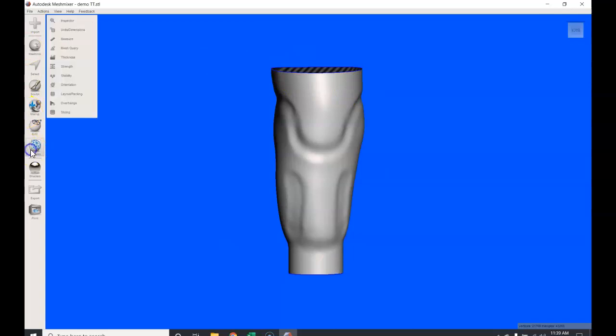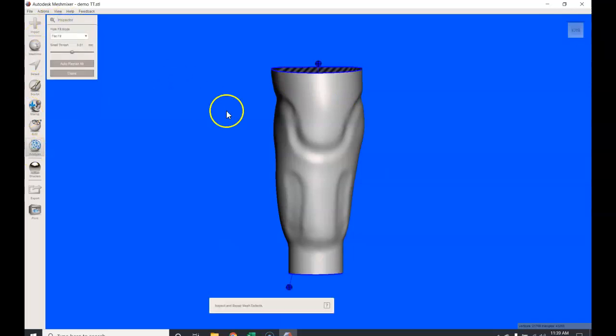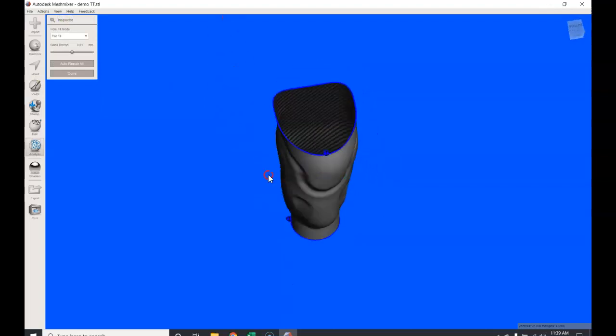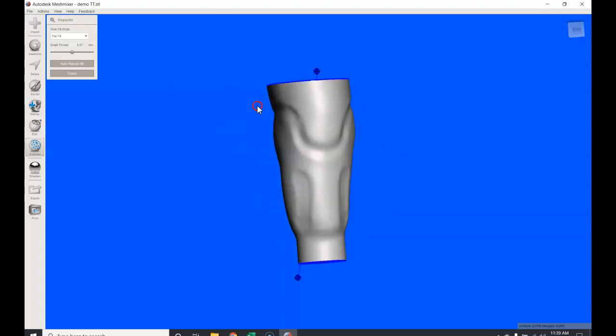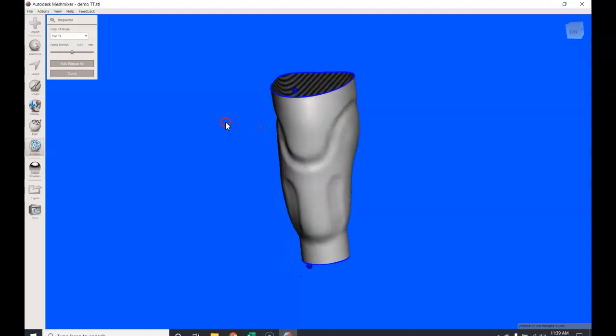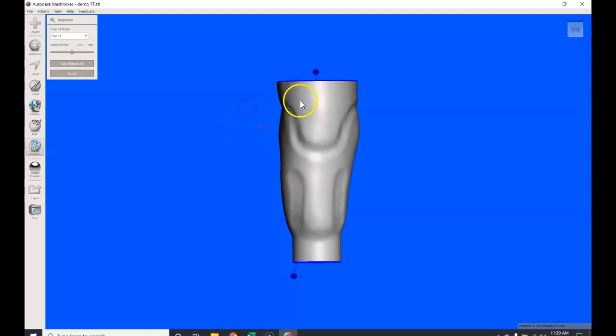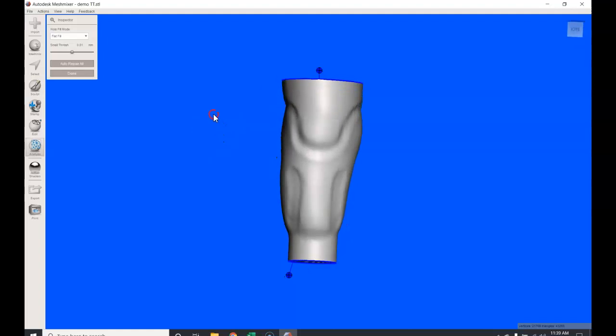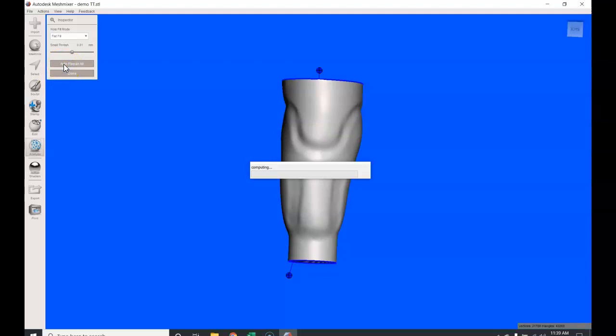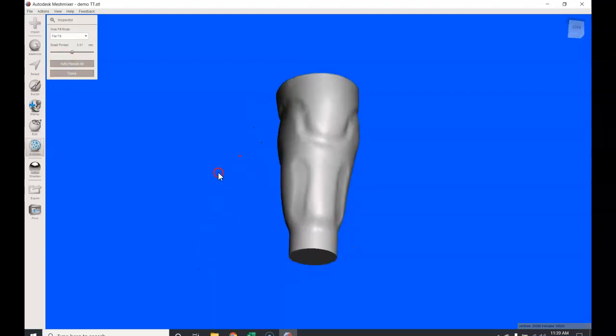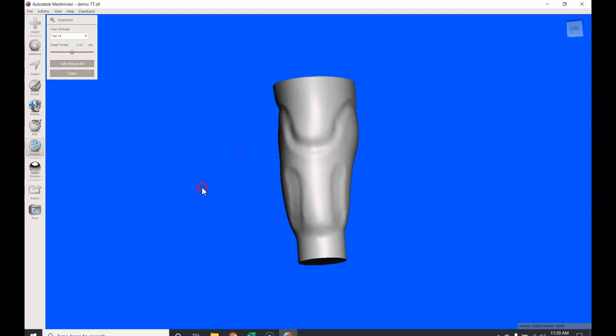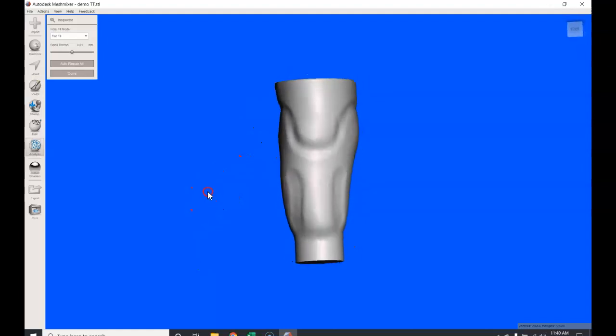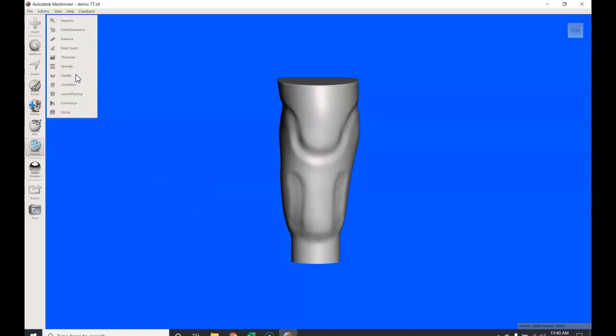So the first thing we want to do is bring it in and we want to analyze this. We're going to hit the analysis tool and we're going to hit the inspector tool. Now if you notice that this sort of hollow mesh cloud file—I think of it as like a skin, a lampshade—it's asking us to close these off. So we could just do an auto repair; we're going to take those and it's going to fill it in. All right, perfect. So now it almost looks like we have what amounts to very similar to a plaster model. Now we're going to click done.